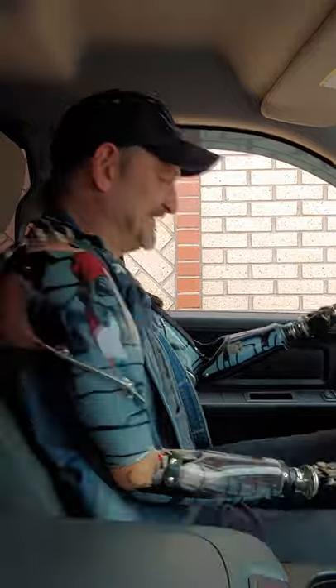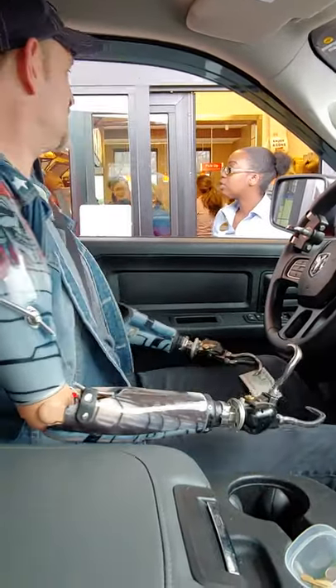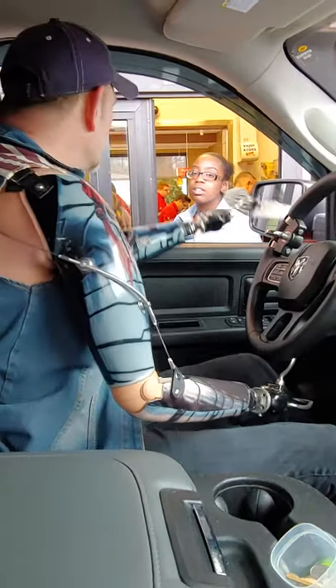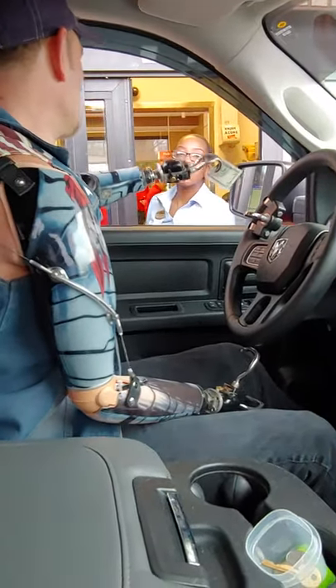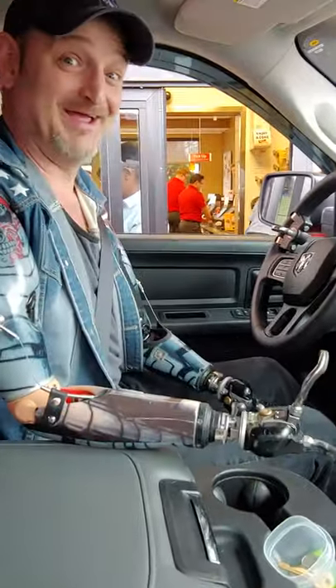About to get me a cup of coffee. Hello, how are you? You care if I take this? I'm showing people how to do this with my prosthetics. Okay, cool. Thank you. She said yes.